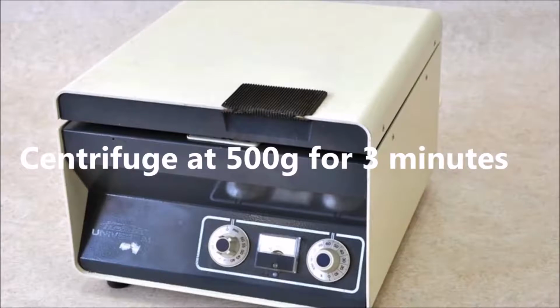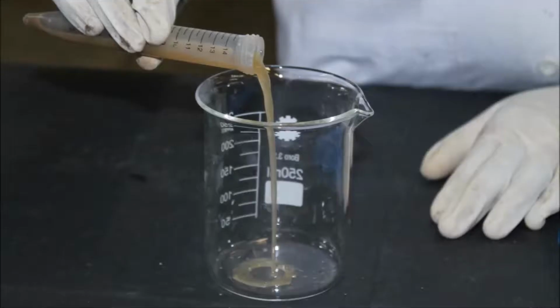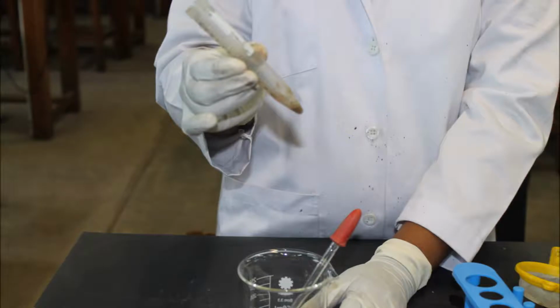After the centrifuge stops, remove the tubes. After centrifugation, you should see 4 layers as shown on the screen. Gently loosen the plug of fatty debris with an applicator stick and pour off the top 3 layers carefully in a single movement. Try to decant all of the supernatant fluid, leaving only the sediment.